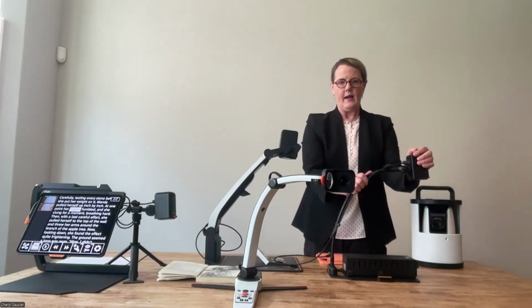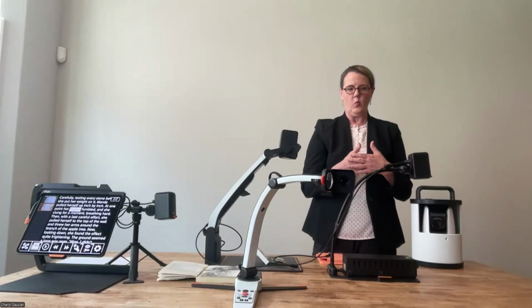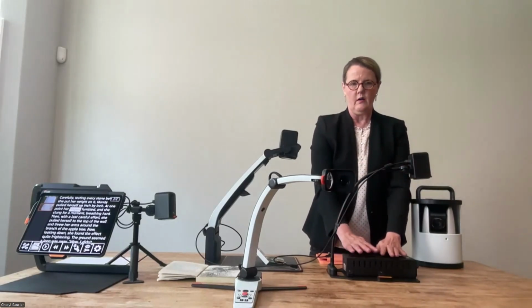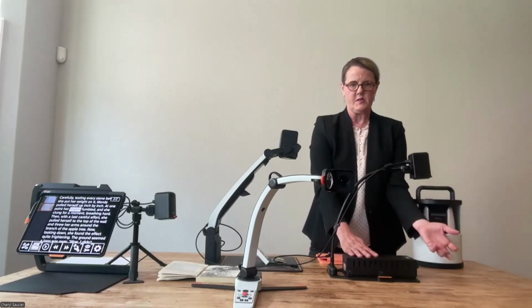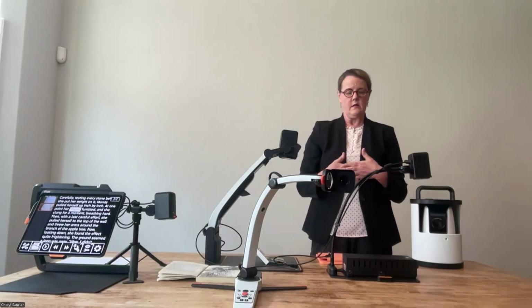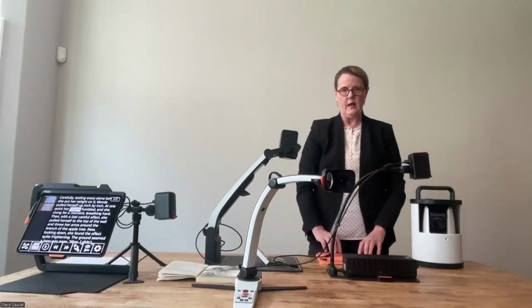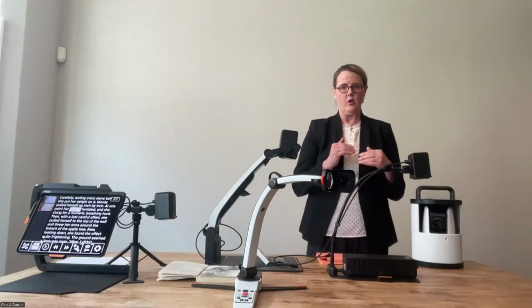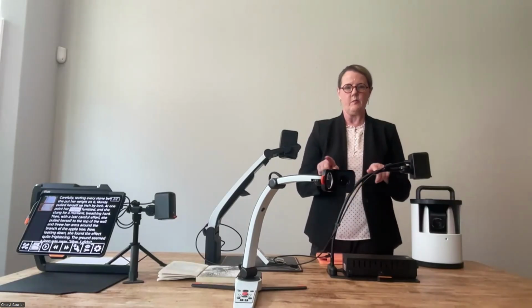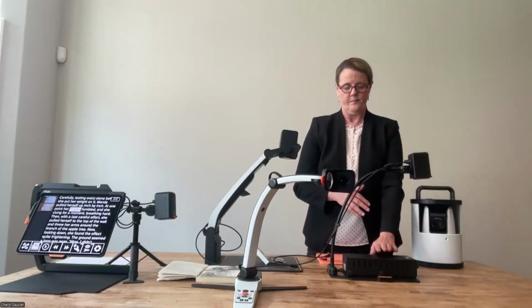The Wi-Fi cam. This is an interesting idea if you've got an environment where a teacher needs to have control of the device. They have a worksheet, they have specific things that they want to show under the camera. Then the student can be back at their desk using their iPad with that magnified content within our app. They can use all of the great features in that Magnilink Viewer app, with a device that's the same device everybody else has. So that's the appeal of having a wireless solution.